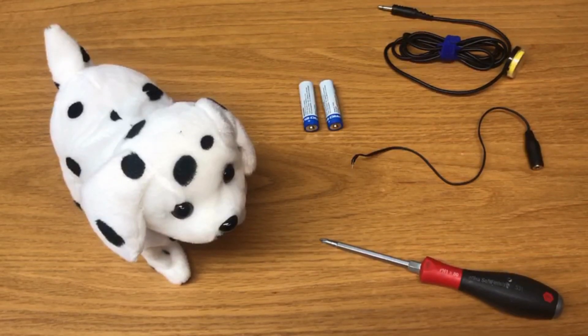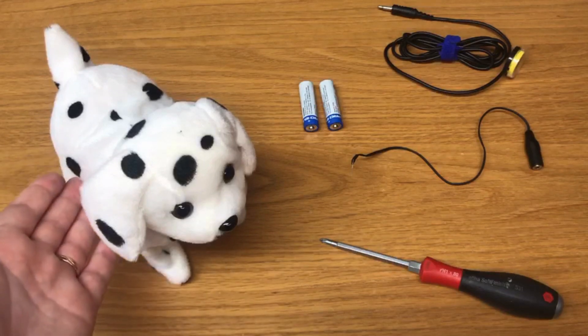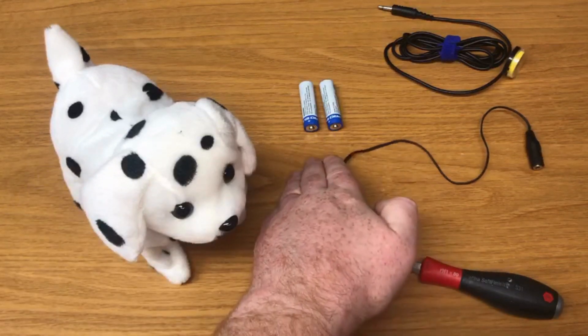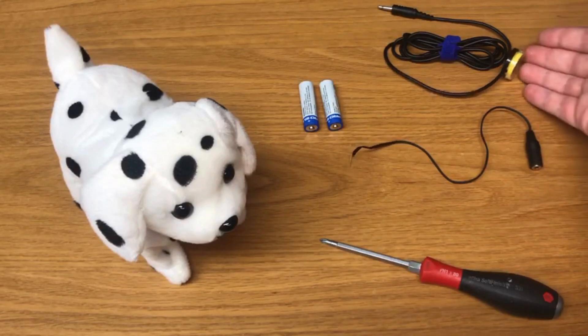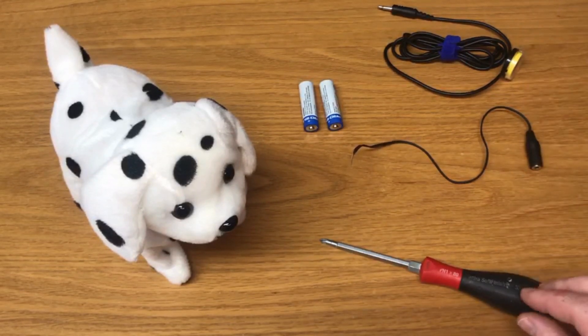In this video we will show how to switch adapt a toy. You will need a toy we are choosing, compatible batteries — in this case two AA — a switch adapter, a switch to operate the toy, and any hardware required to access the battery compartment.